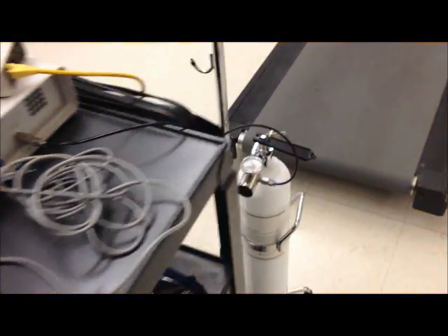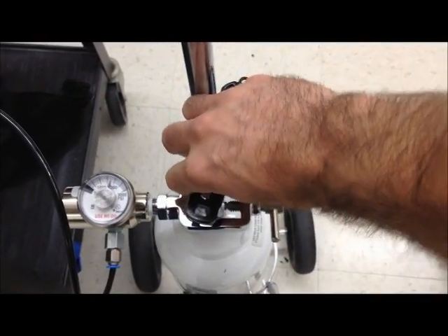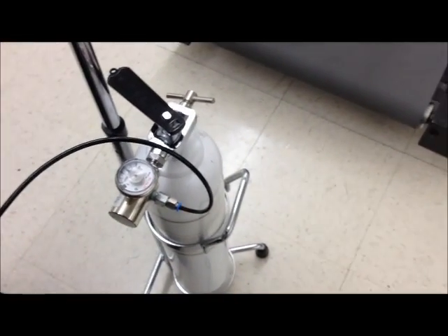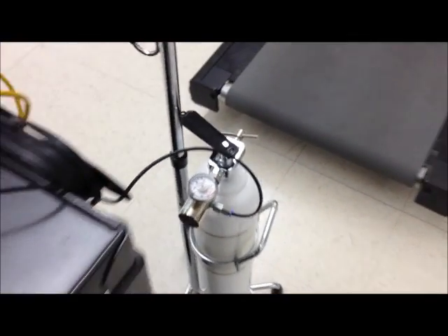After volume calibration we want to turn on the tank to do gas calibration. You only need to turn it about 180. If you hear whistling or leaking you need to turn it off and reseal the regulator.